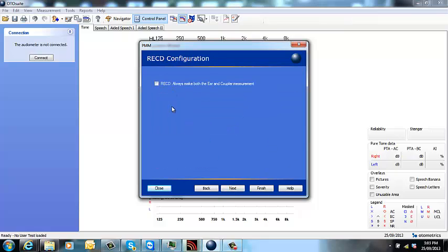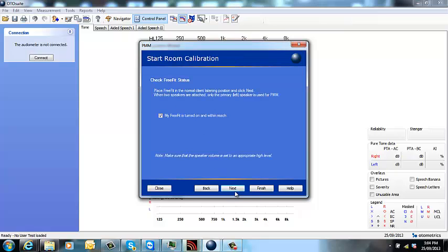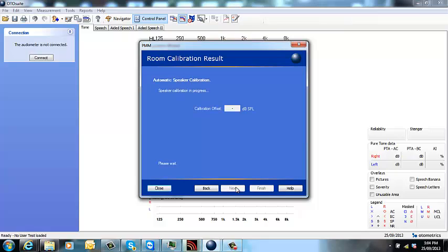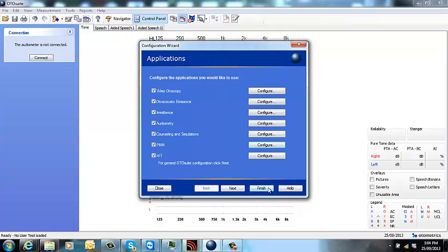Click next. Don't worry about this RECD unless you've also got the test box. All the same. Just tick as you go. And again the speaker will generate sound and give you an offset. Finish.